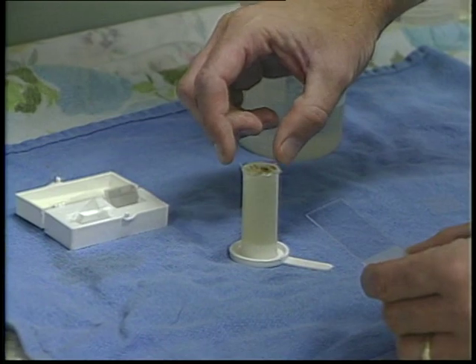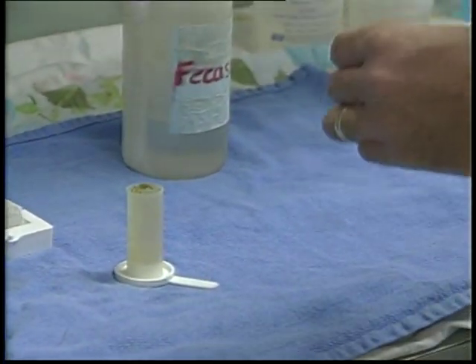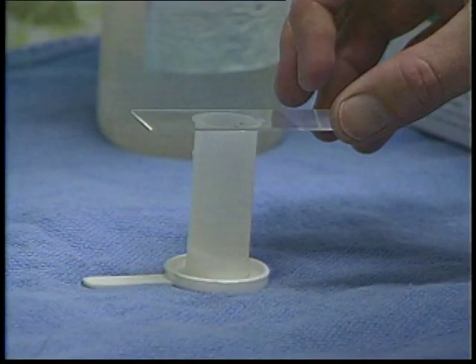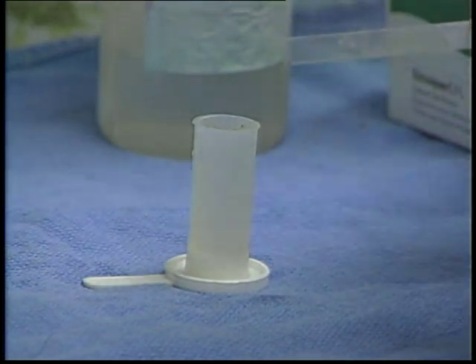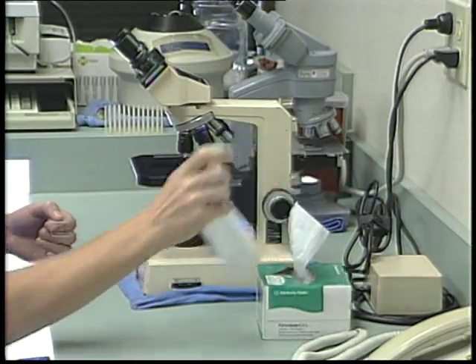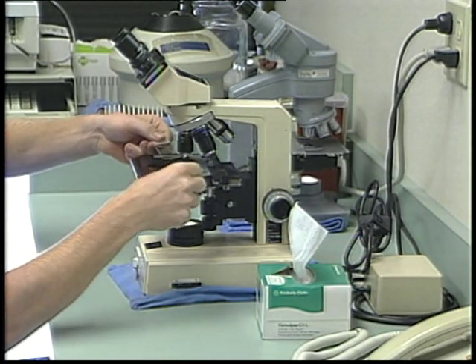Now carefully lift the cover slip and set it on a microscope slide, being careful to transfer some of the contents of the fecal solution adherent to the cover slip. If a microscope slide is used to cover the fecal solution, you will need to quickly flip it over before placing a clean cover slip on top of it. If excess solution is on the underside of the slide, it should be wiped dry so as to not get this salty solution on the microscope.